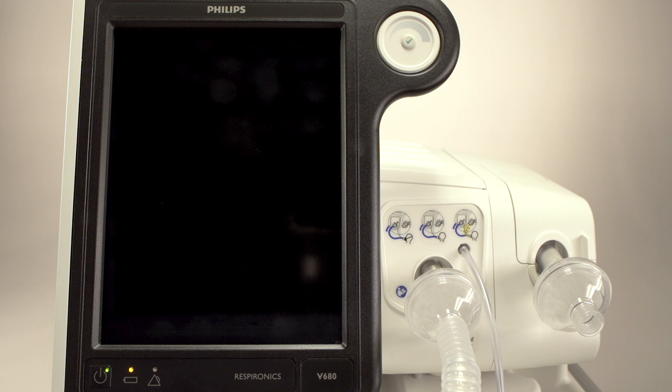If you've worked with the V60, except for a few subtle differences, you already know how to operate the V680.